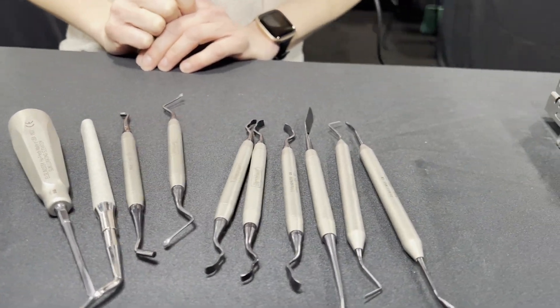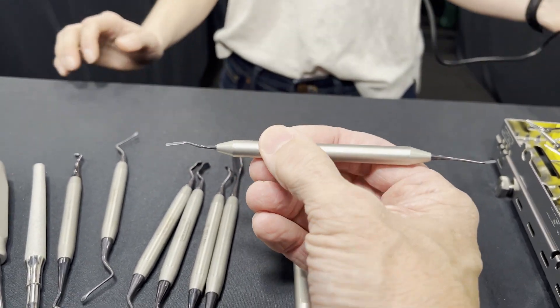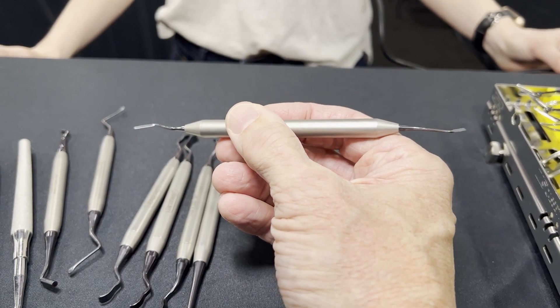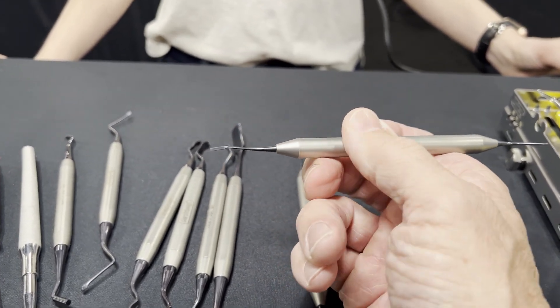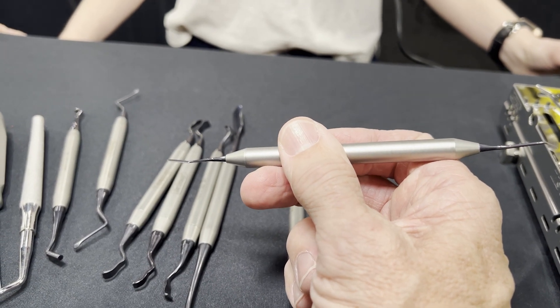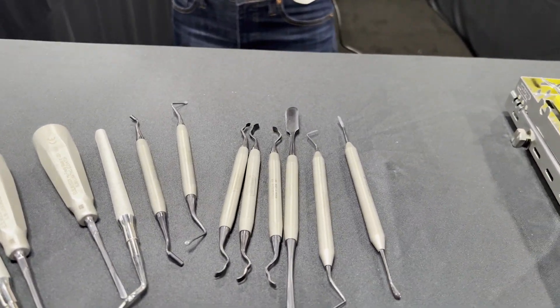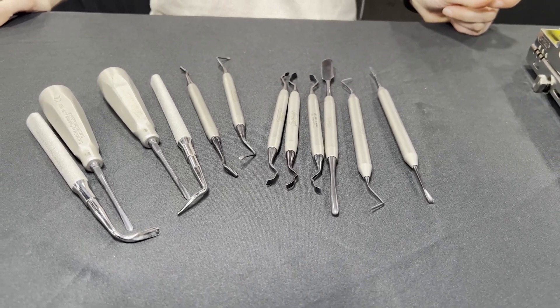Pat Allen has it on his end-cutting instrument. This is one of Pat Allen's instruments he uses with his perio kits that I'm very fond of — the end-cutting instrument. So you can go into the sulcus and separate the periosteum around the neck of the teeth for a tunneling procedure. What's neat about this is with the black anodized metal: when you slide it underneath the tissue, you can actually see it through moderate to thin phenotypes. You can actually see the black showing through — you can see the tip of your instrument underneath the soft tissue as you're doing your elevations. He also has the Orban knives in that kit as well. In addition to the reduction in eye strain, it works really nicely for seeing the instrument inside the tissue while you're working.